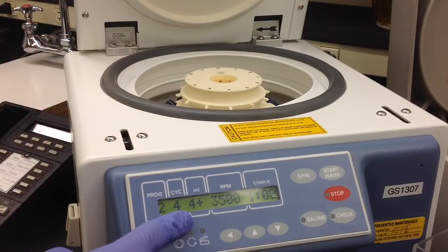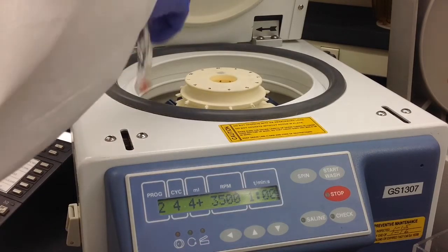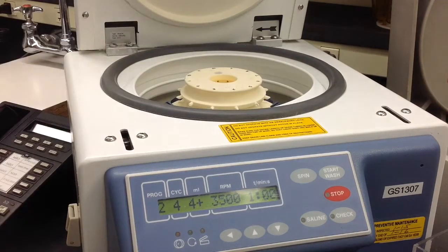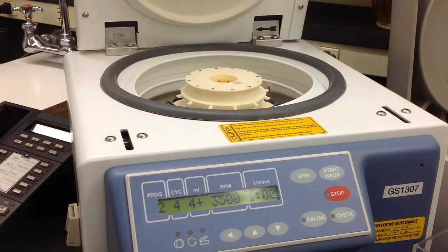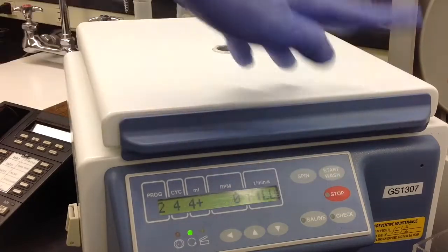And then before you move on, you need to wash all of your specimens in a cell washer. And depending on your policy, it'll be three to four times. And hopefully you don't have to manually wash.